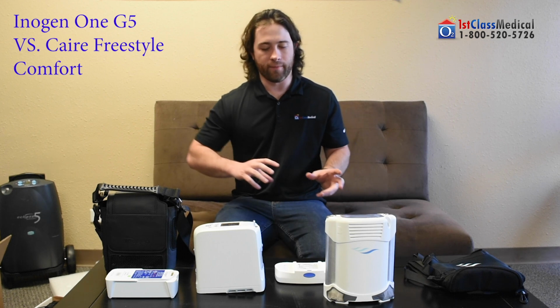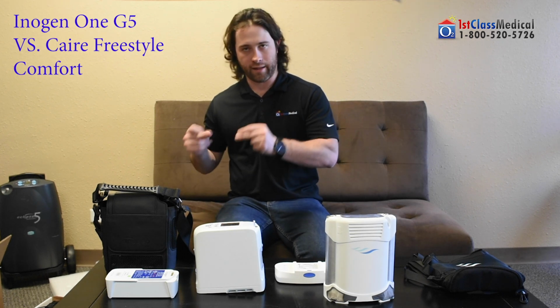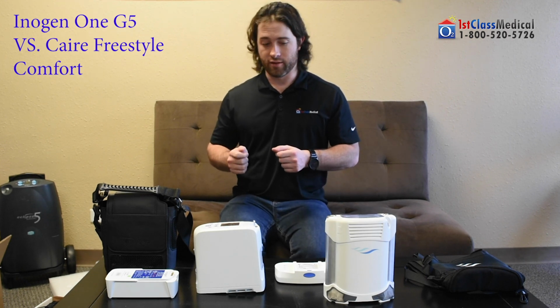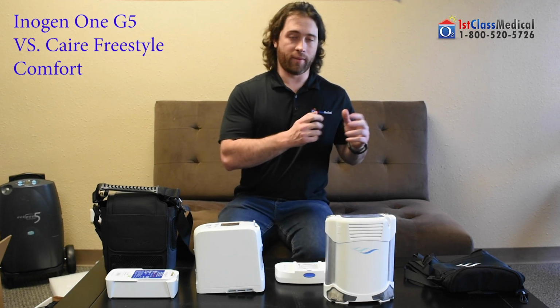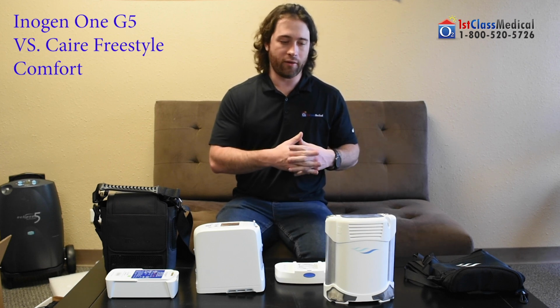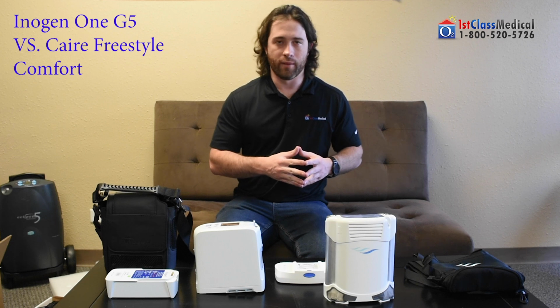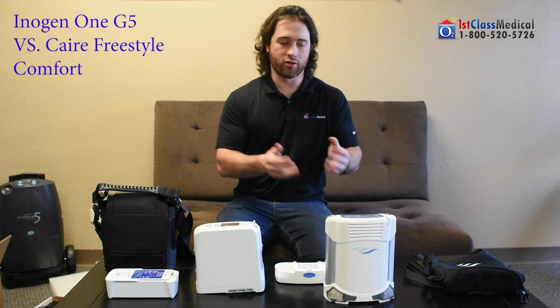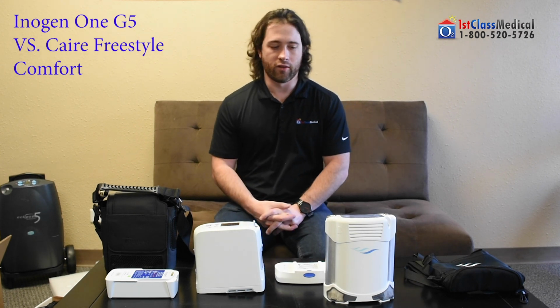Is it more of the upfront, I need that extra oxygen setting, or that 0.3 pounds makes a huge difference to me? Or are you more worried about the service piece of this and making sure that at the end of the day, when you need something to be replaced, with one you're going to get charged, and with the other you will not get charged after 3 years.